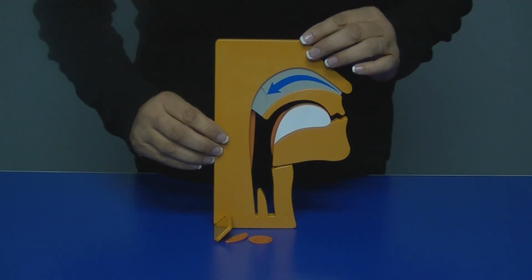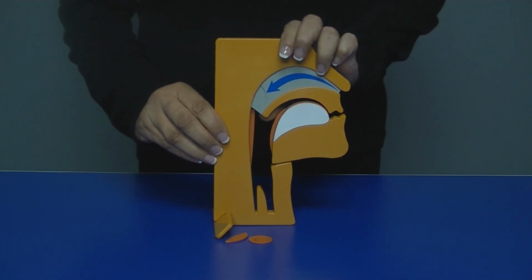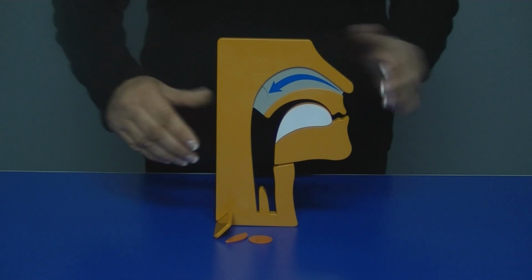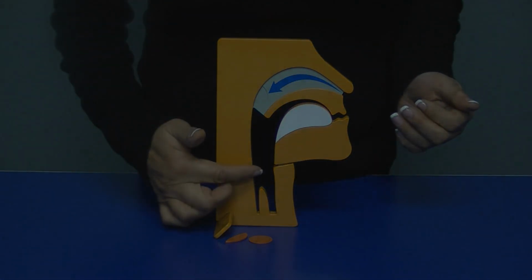Now with the mandible being forward, this will allow the shrinkage or the normalization of the soft tissue, and you can show the patient that as well. It is allowing the tissue to heal, but even more importantly, you can show the patient how much greater that airway becomes. The OSA Demonstrator is one of the best educational tools to illustrate to your patients their conditions and the benefits of oral appliance therapy.